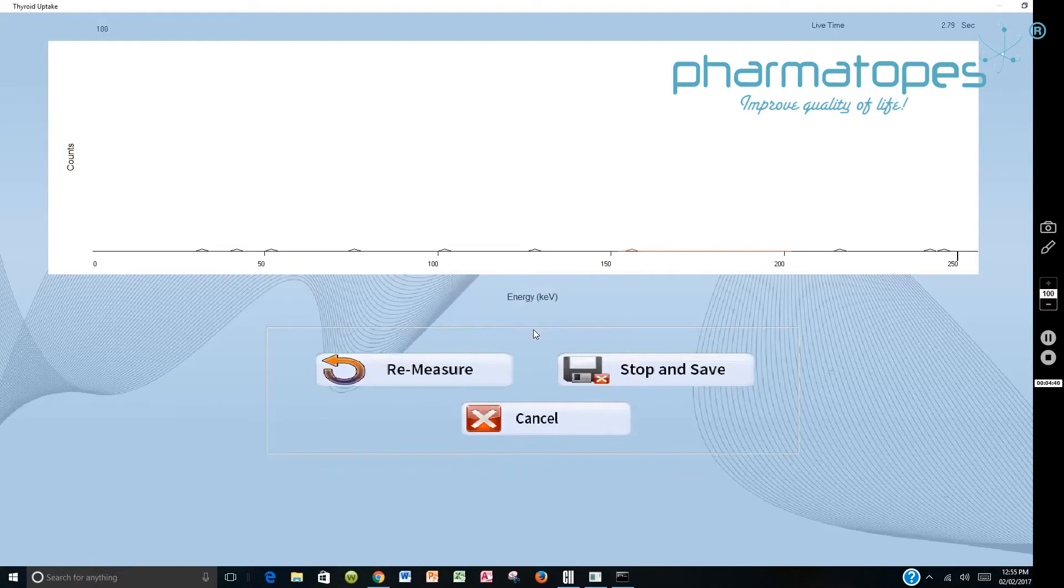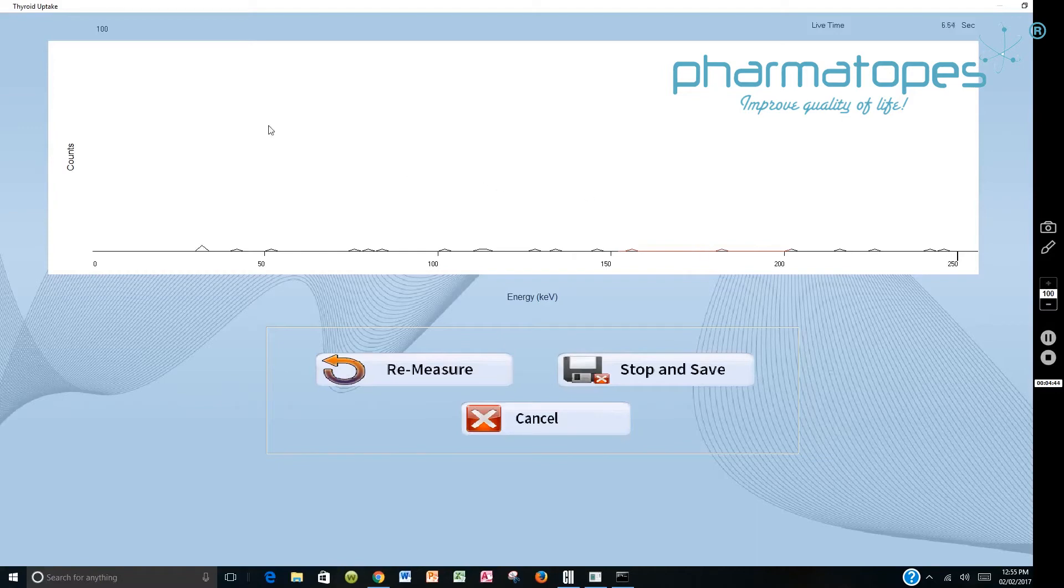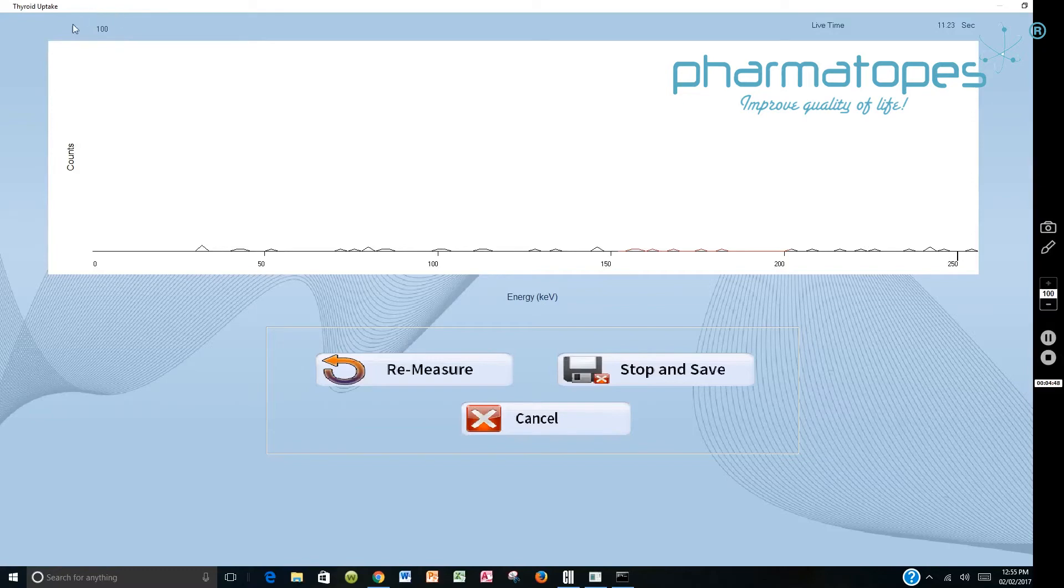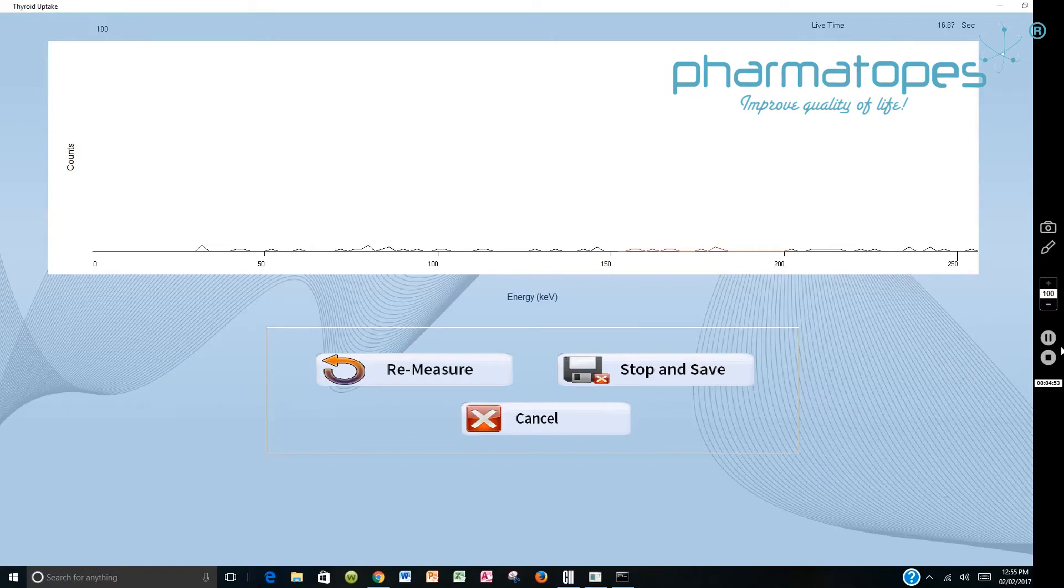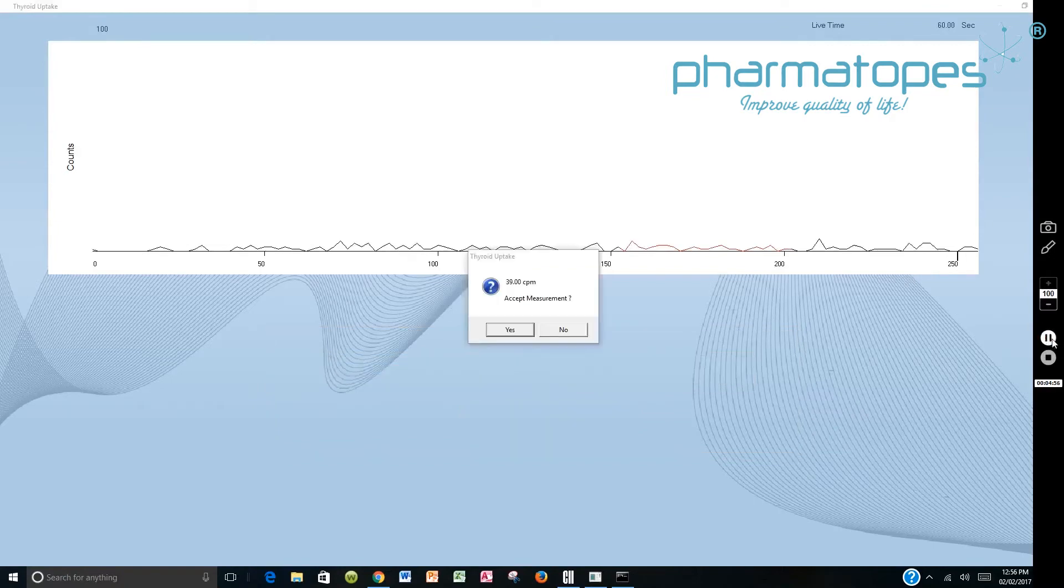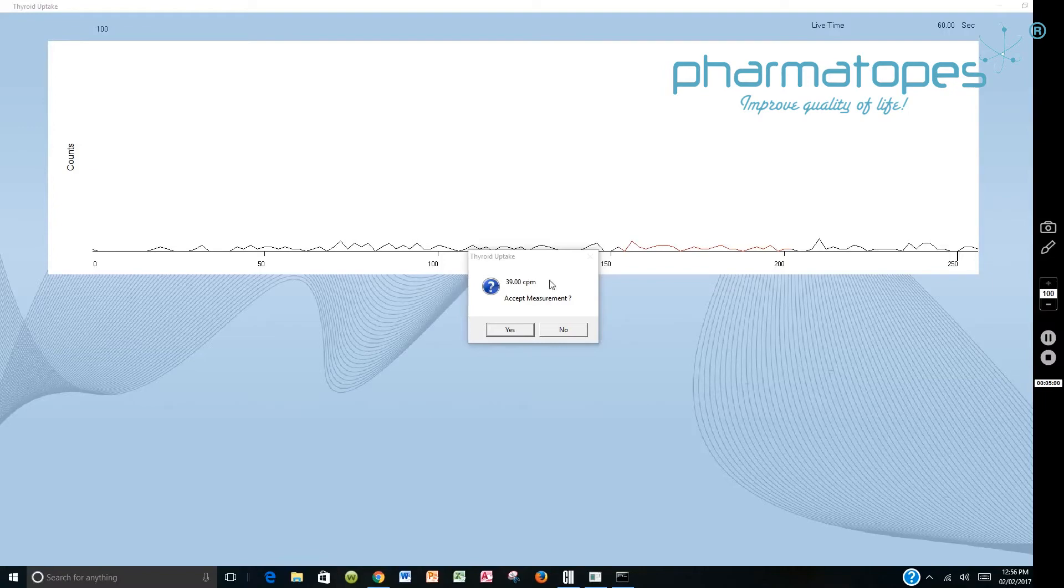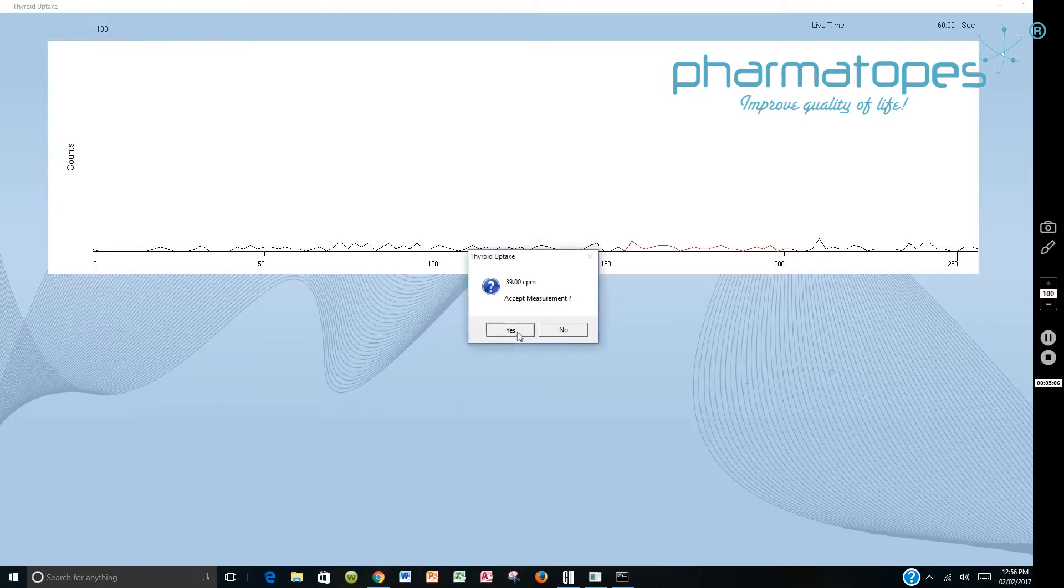When you're counting this background, this should be relatively flat. It's a spectrum of any isotopes that the machine's picking up. Your autoscaler here is at 100. It should remain at 100 when you're counting room background. This will count for 60 seconds. When the one minute is completed, you'll get a value here. It should be a fairly repeatable value. The autoscaler is at 100. You can accept it. Just review your spectrum and accept it. Say yes.